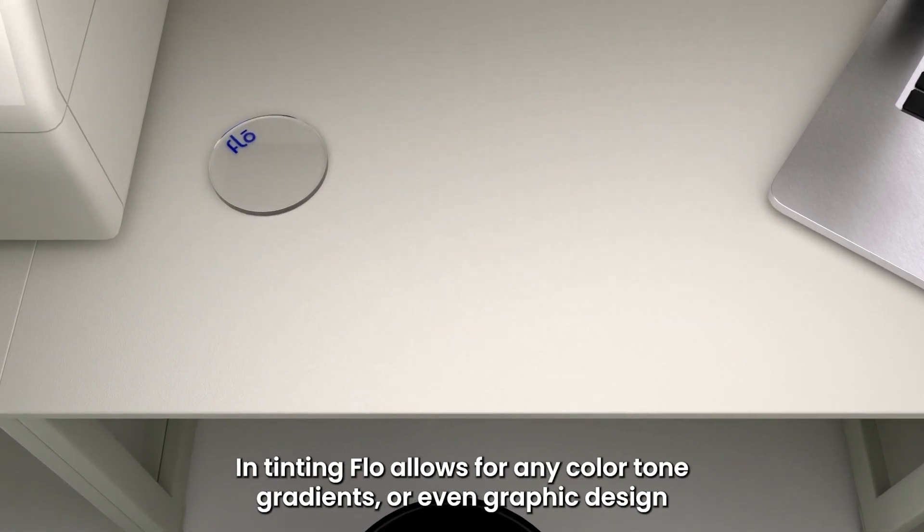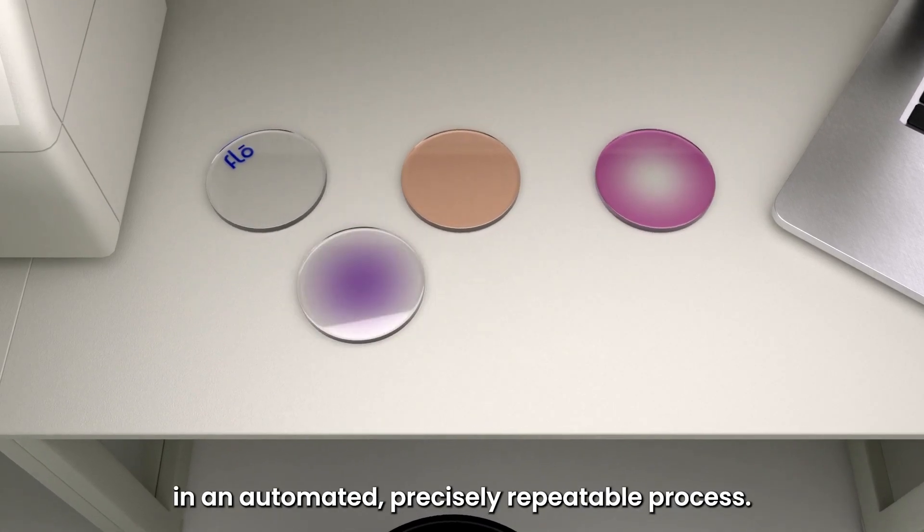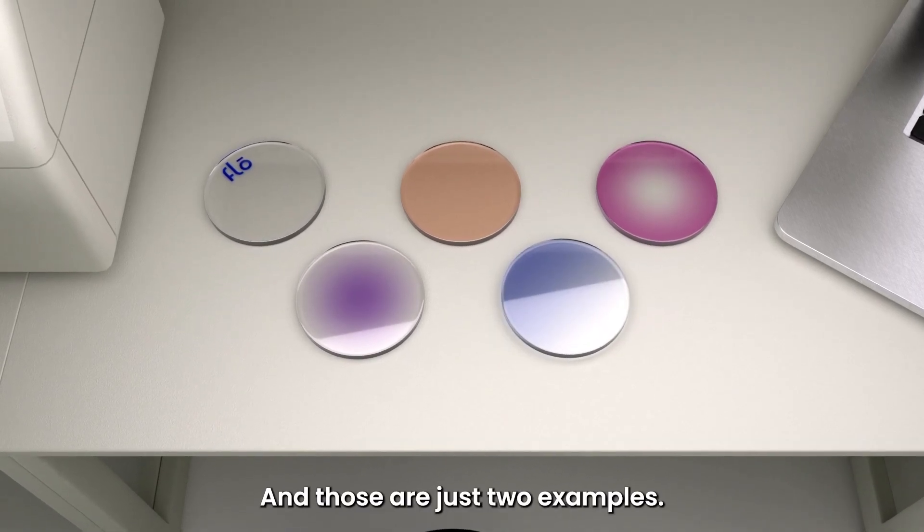In tinting, Flow allows for any color tone, gradients, or even graphic design in an automated, precisely repeatable process. And those are just two examples.